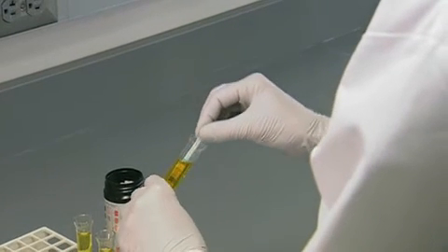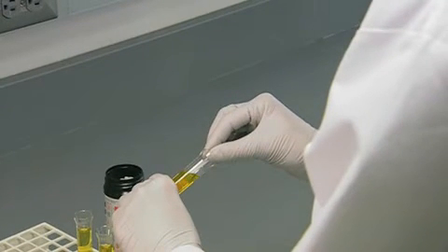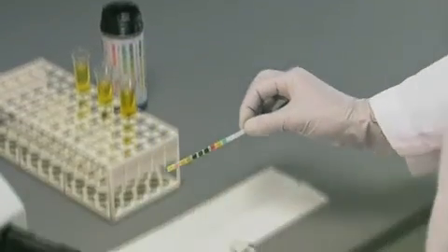Dip the reagent strip into the sample wetting all the pads. Be careful not to dip the automatic identification band or color band into the urine sample. Remove the strip immediately from the sample by dragging the edge against the side of the sample container.